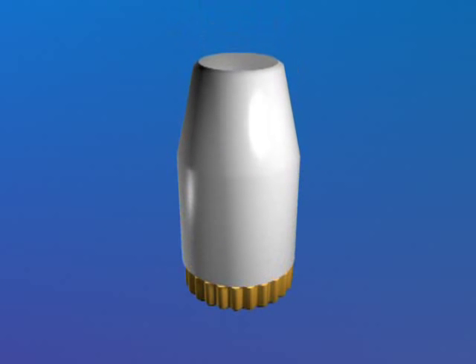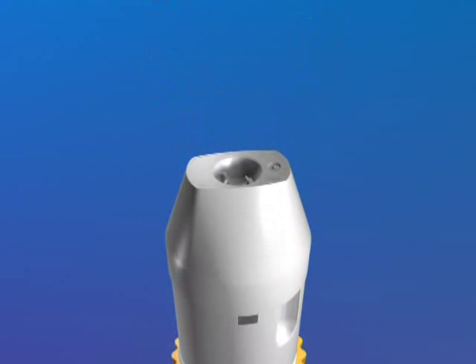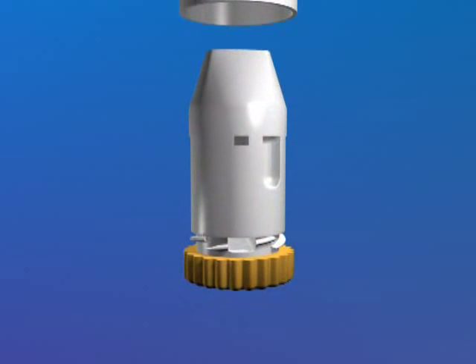When you have finished, replace the cover. To clean your turbohaler, simply wipe the outside of the mouthpiece regularly with a clean dry tissue. Never wash the mouthpiece. If you have any problems using your turbohaler, please speak to your pharmacist, nurse or doctor. Thank you.